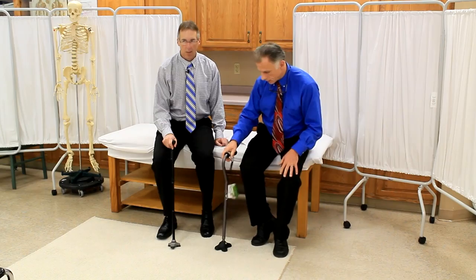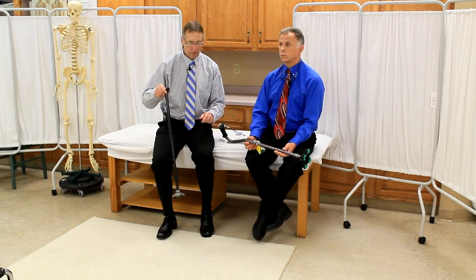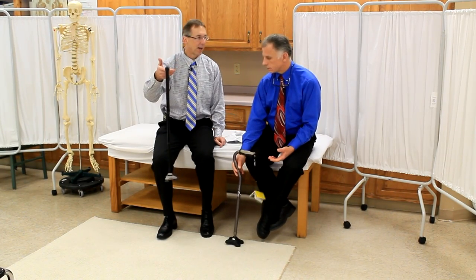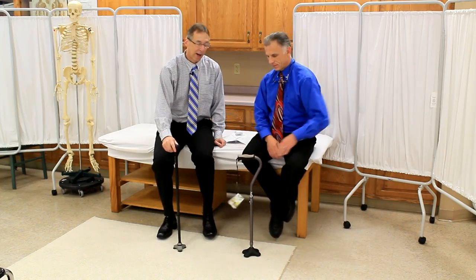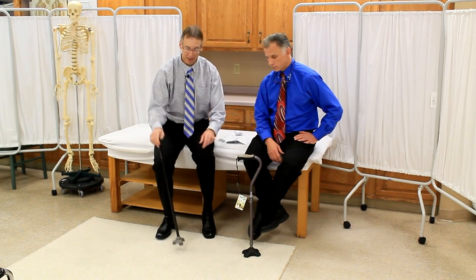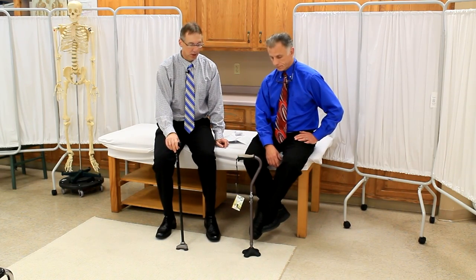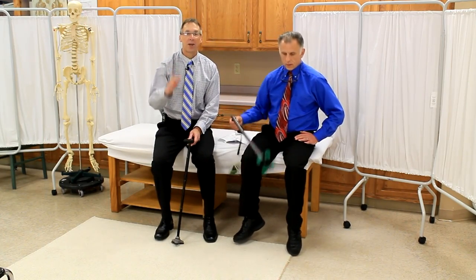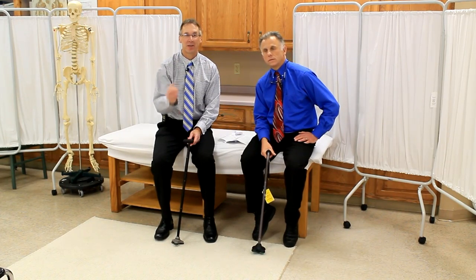One other feature: the Hugo contributes money to multiple sclerosis research with each cane. Also on price: the Hugo was about $24.99 and the Hurrycane was $39.95 — about $40. So in the end, my vote is: unless you need to fold your cane up for some reason, I would stay away from the Hurrycane. I'd go with the Hugo — it's probably a better value, better function, and safer. I really don't like the idea of it collapsing if you hit it — that really scares me. Just our opinion! Good luck, and give us your opinions below.